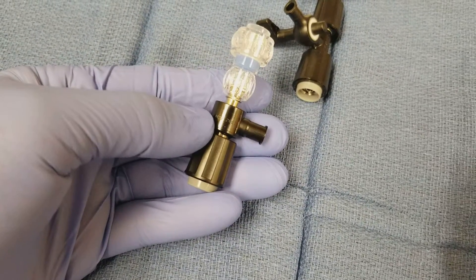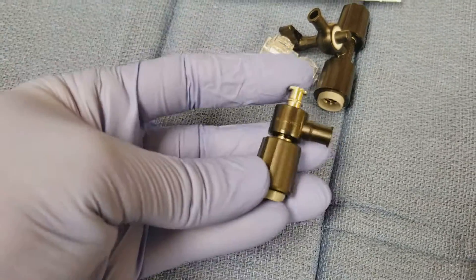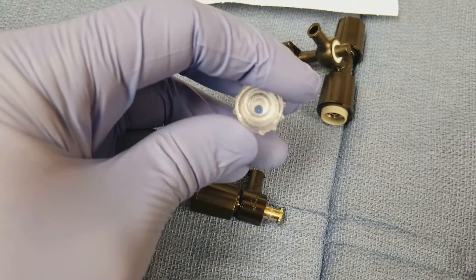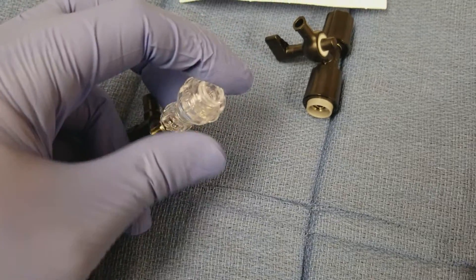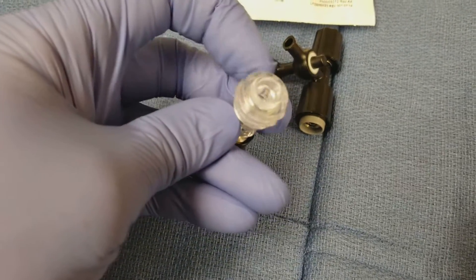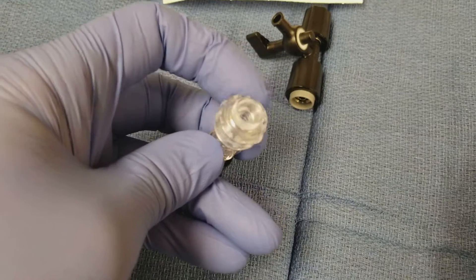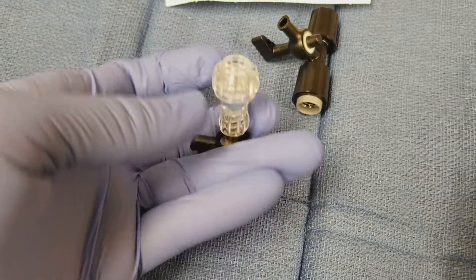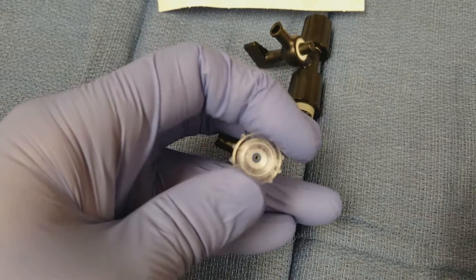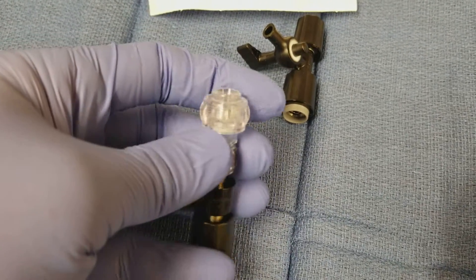This is a much better way to go. This adapter is also made by Olympus — it is the MAJ-2092. Use this with the Gyrus ACMI adjustable biopsy port seal. Not only does this allow you to not spray everywhere with the instrument through the seal, you can also manipulate this very easily with one finger, even in a wet fluid environment or if you have KY on your field and you get it on your finger. You can very easily manipulate this seal. You can also pass instruments through it — you can see the aperture right in the middle there. I can close or open it and pass instruments through it without the use of any introducer.